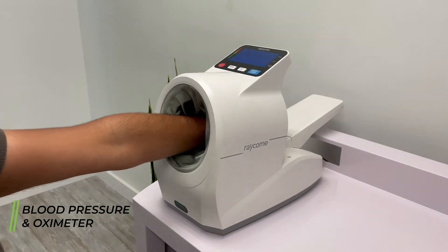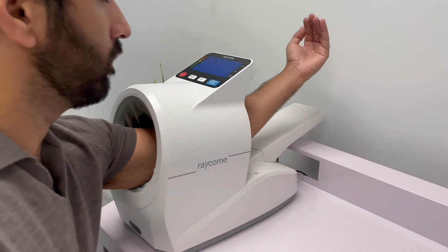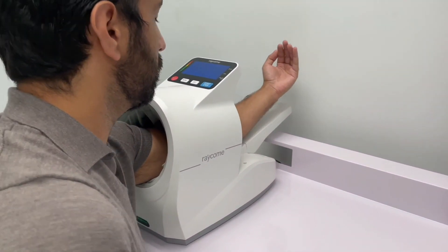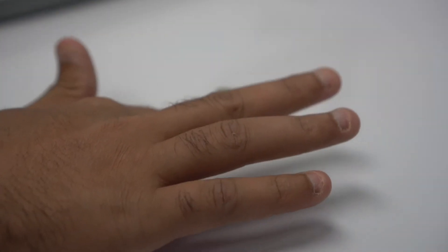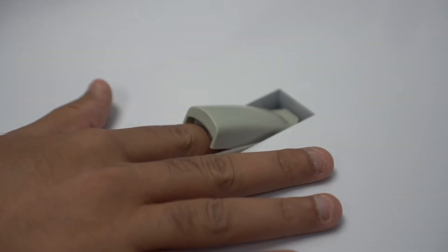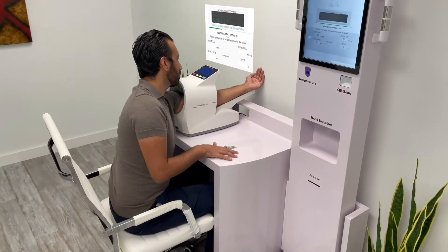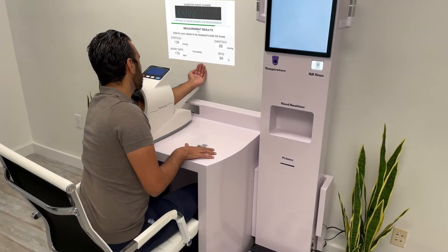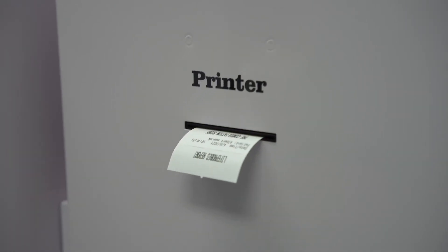Phase four of the exam: blood pressure and oximeter measurement. Please sit down and insert your left arm into the cuff. Rest your elbow on the blue tab and extend your arm with your palm facing up. Now insert your finger deep into the oximeter probe. The measurement will start automatically — please try not to move until the progress bar displays 100 percent.